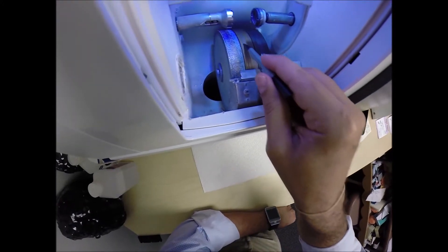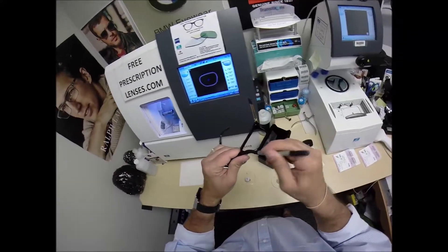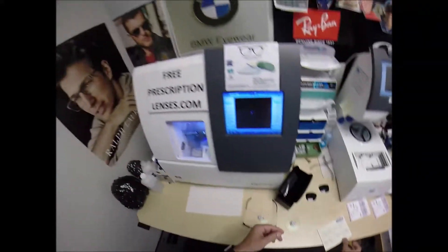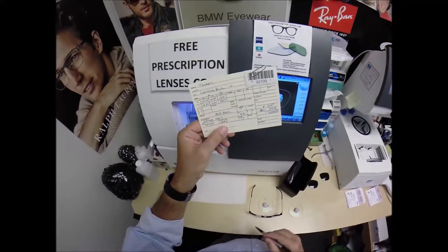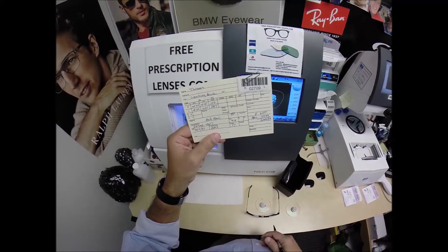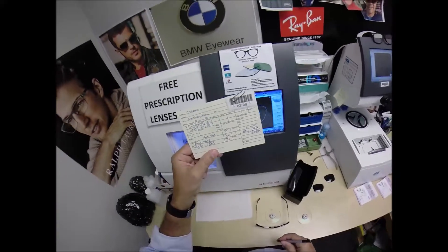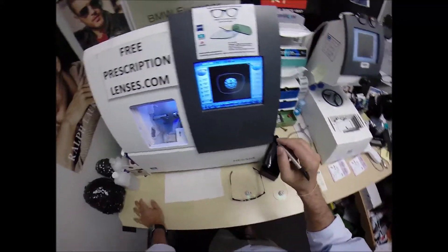The actual cutting wheel is this diamond-crusted wheel that's going to grind away your lens material until it's the final size. This wheel in the center that has that channel, that little valley, that's what's going to put the V-shaped bevel on the lens so it stays inside the bevel of the frame. I'm going to wake the computer up. This is job ID number 2709.